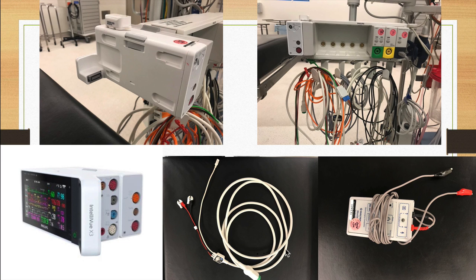This is the neuromuscular monitoring that's based on accelerometry, where these two leads, much like the old school one, are placed in whatever nerve distribution, most commonly the ulnar, except this one here is attached to the fat pad of the thumb, so when the monitor stimulates the patient with a train of 4 or whatever type of stimulation you're using to evaluate paralysis, it will cause the thumb to twitch.